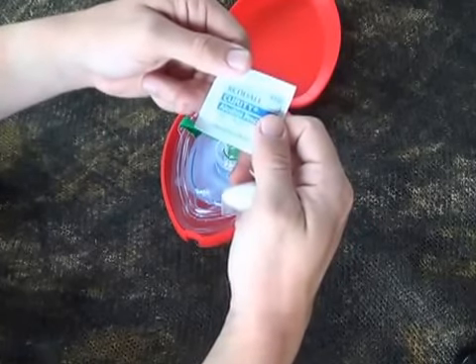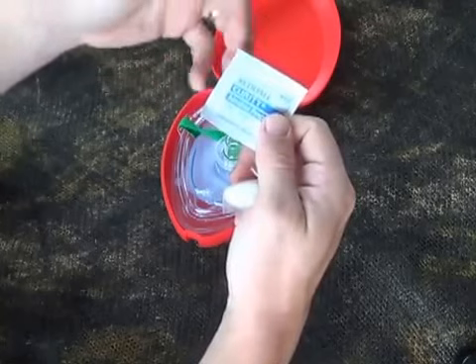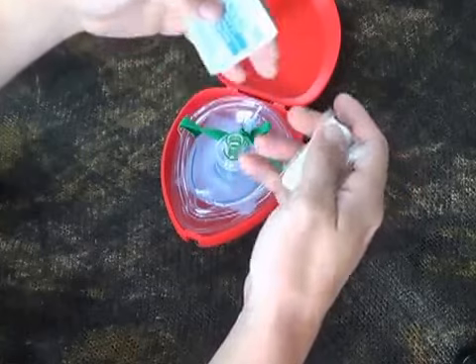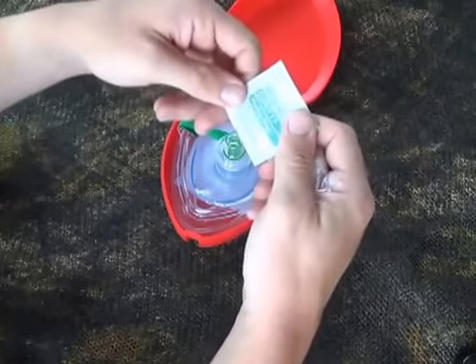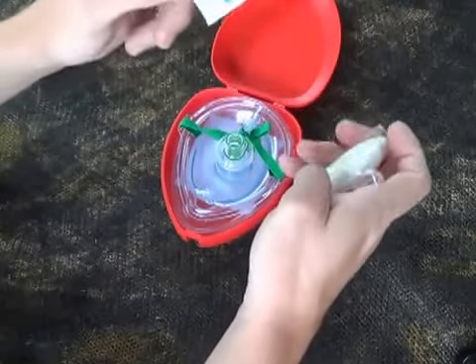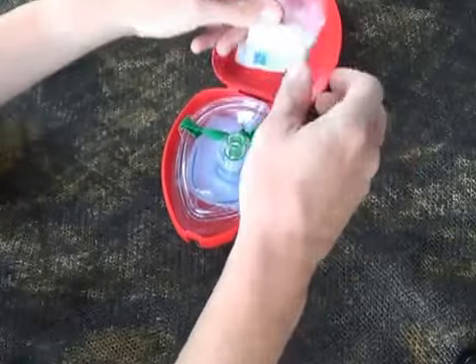The alcohol wipe is for wiping the mouth down of your patient. When you go into cardiac arrest — meaning no heart rate, no pulse, and you're not breathing — your smooth muscles relax. So what you had for lunch or dinner is going to come up, and this wipe is just to clean the patient's face down a little bit.